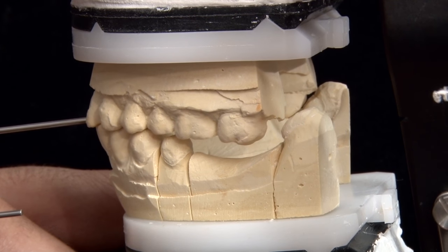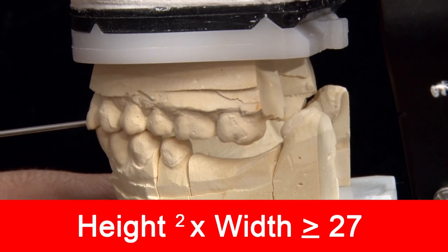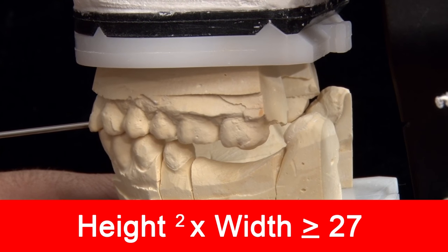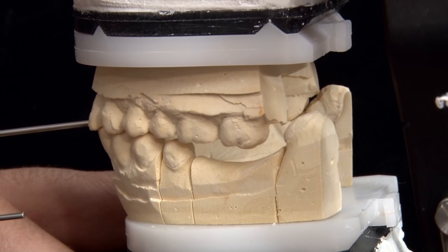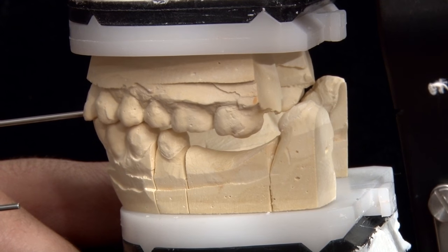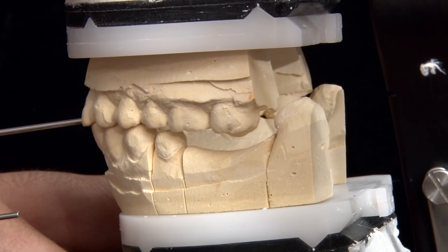The rule of 27 is basically something that we use in the lab to evaluate whether a Zirconia bridge is going to be successful or not. What we can do is we can determine the height and the width of a particular connector from our designing software — the square of the height multiplied by the width of the connector. This value should be 27 or more. In case it is less than 27, then there are good chances that the bridge might fracture from that particular connector and the bridge is not going to be successful.